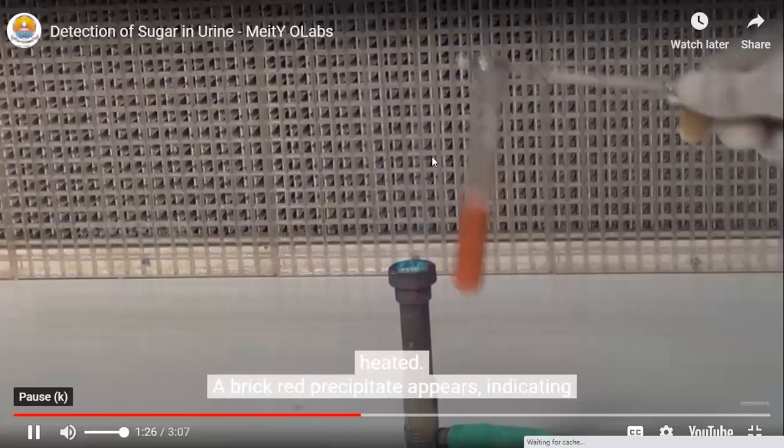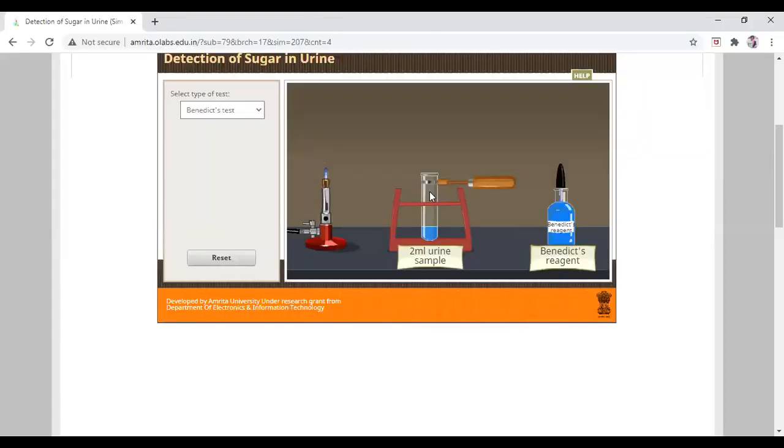Why is it not going on the flame? Okay, first we have to light the flame and then we have to put the test tube on the flame. For 2 minutes we have to flame it. It has turned green. Okay, it has turned green. So that means glucose is present in our urine sample.